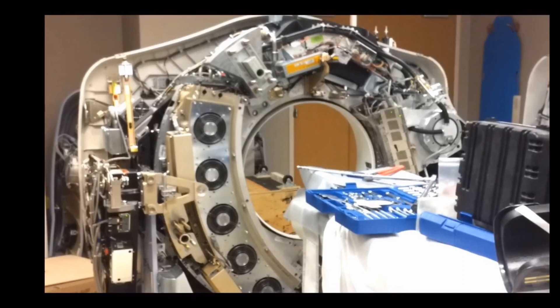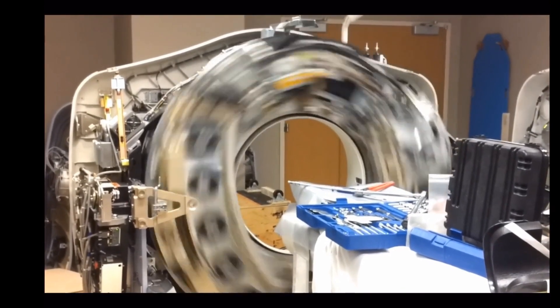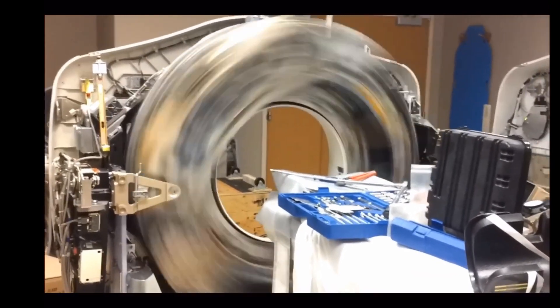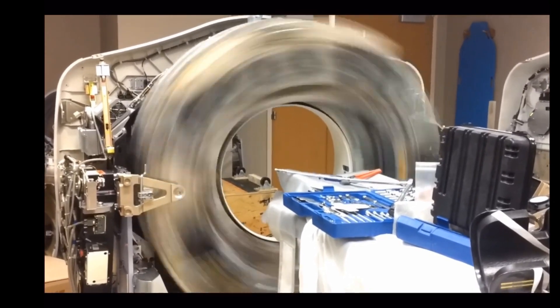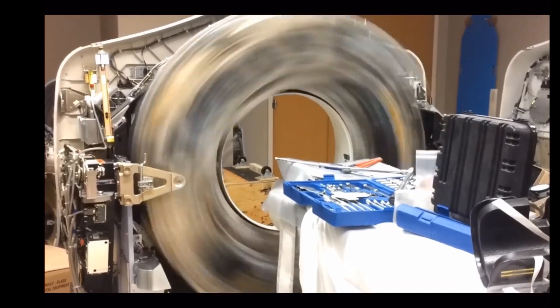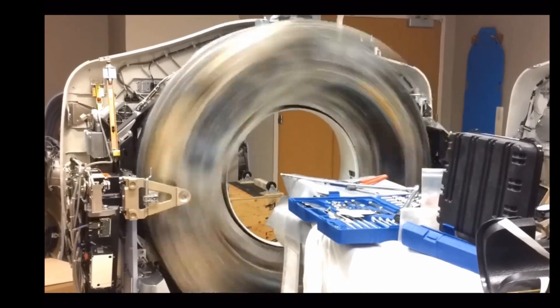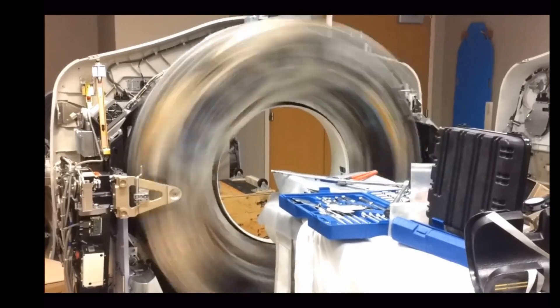This video is really dramatic in that it shows the inside of the gantry as the CT scanner is spinning. You can imagine this thing weighs several hundred kilograms and the spinning around between two to three revolutions per second has to be absolutely perfectly balanced. The images get transmitted from the spinning gantry over to the housing via a radio transmitter within the spinning gantry and a radio receiver within the housing, so that images can be transferred in real time.